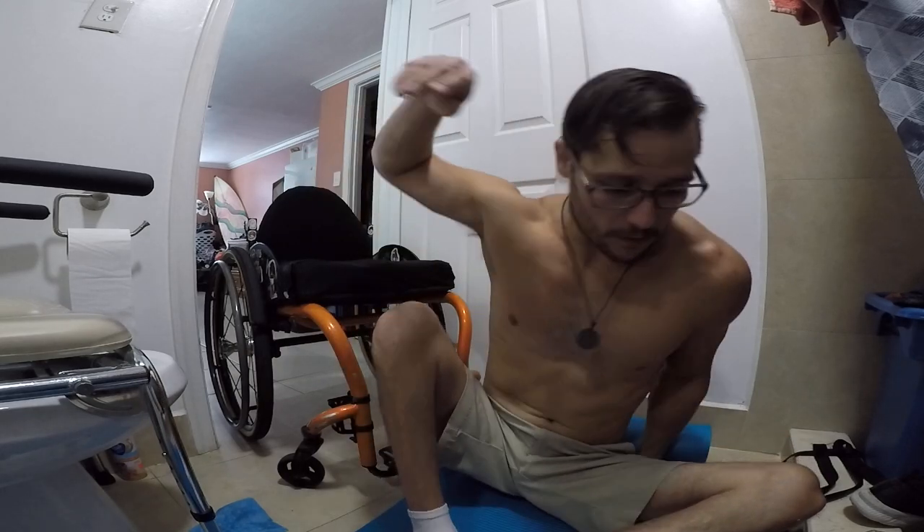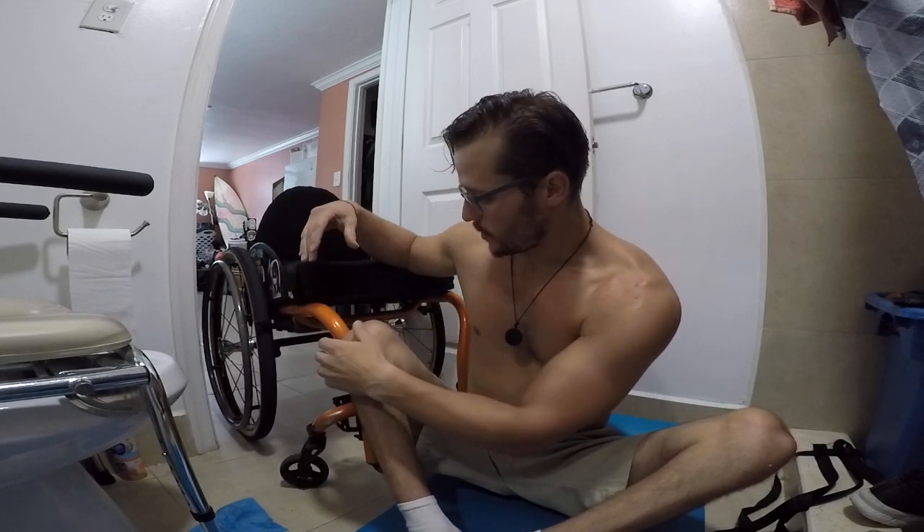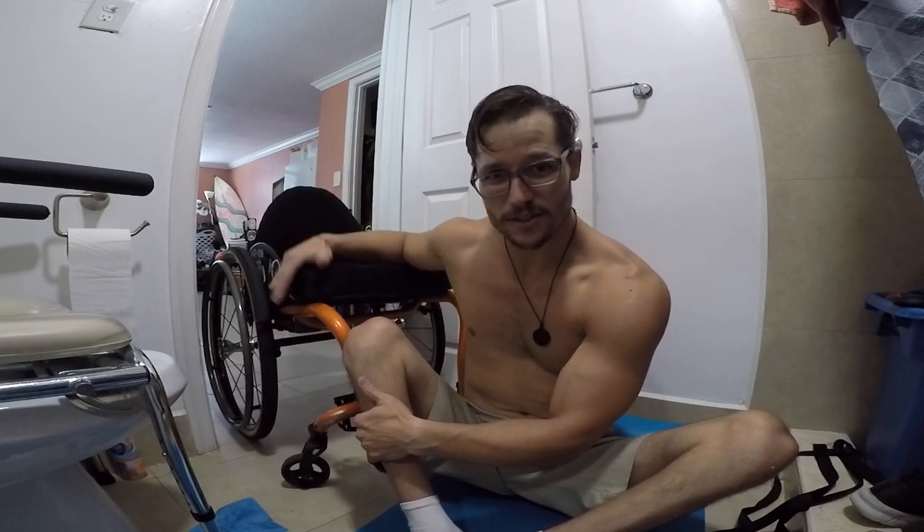And forward — everything — because you never know your situation. This is the opposite side of where I got down from in another video. So, feet are very important: they need to be positioned somewhat like this, kind of close to the chair, and your butt should be in line with the chair. I put my hand on the bar — not up high, because it doesn't feel secure. I grab the bar so I have control of the whole chair.